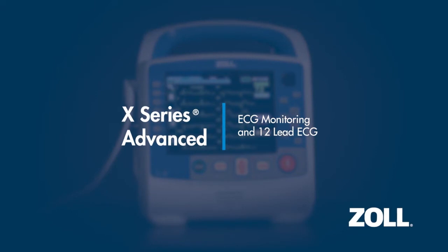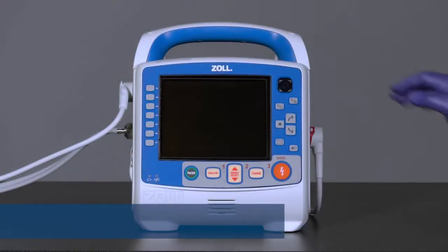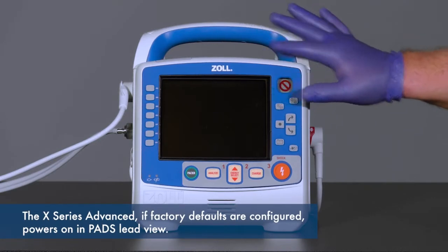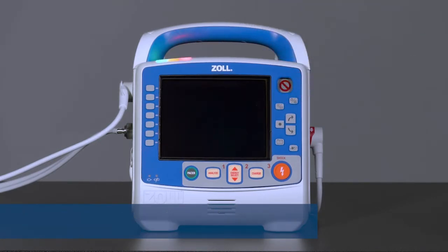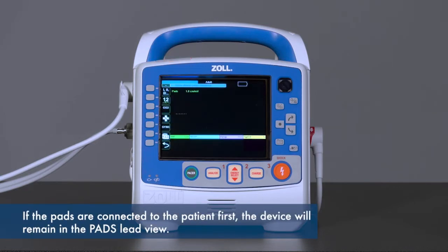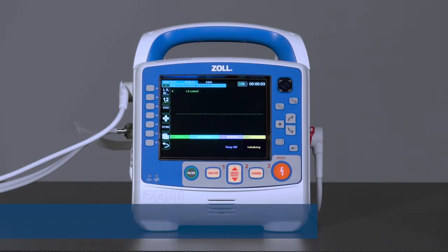ECG monitoring and 12-lead ECG. The X-Series Advanced, if factory defaults are configured, powers on in PADS lead view. If the pads are connected to the patient first, the device will remain in the PADS lead view.